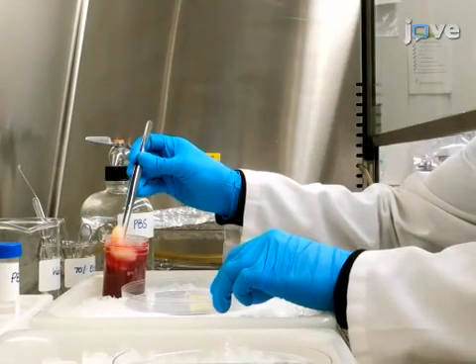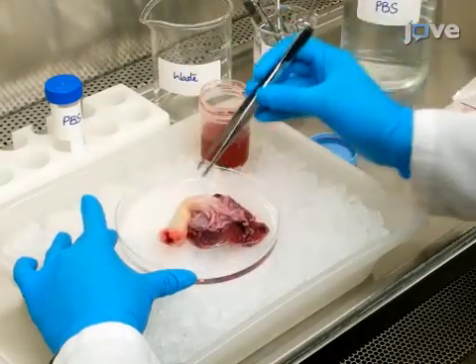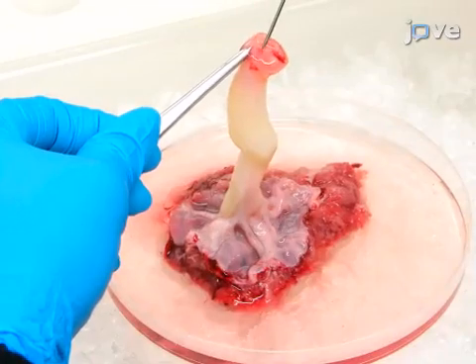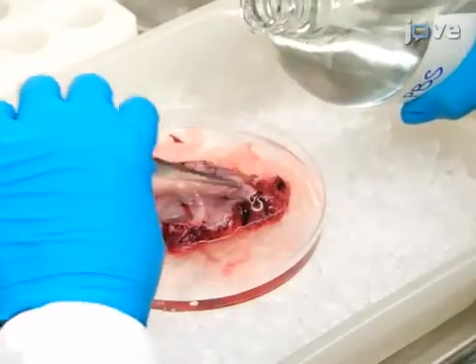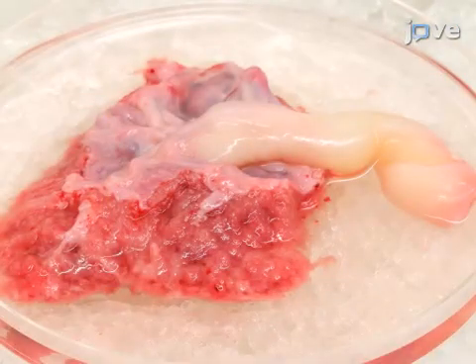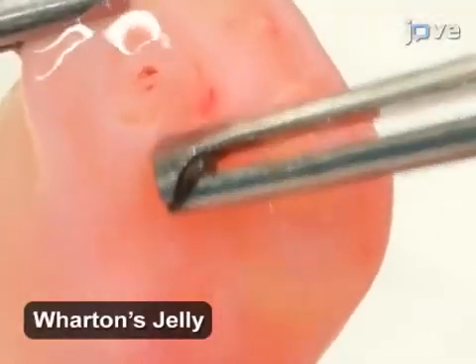Begin by placing the sample in a 150 mm Petri dish on ice in a biosafety cabinet, and use a needle and syringe to rinse the tissue several times with ice-cold PBS. When all the blood clots have been removed, carefully examine the sample to identify the different anatomical regions.